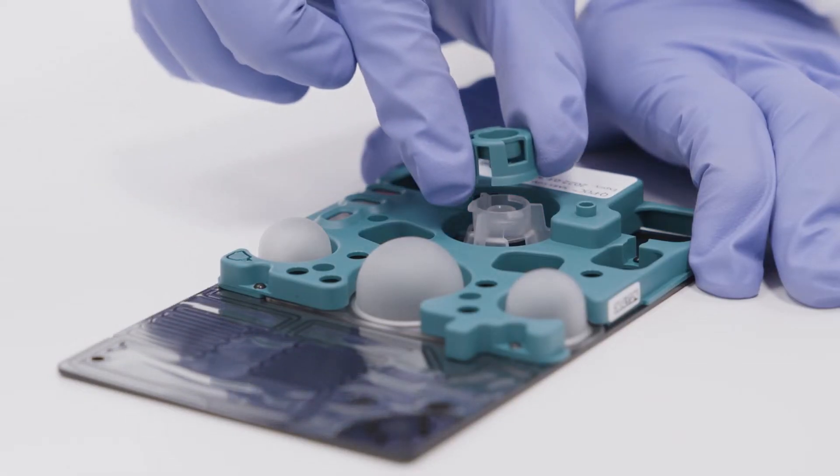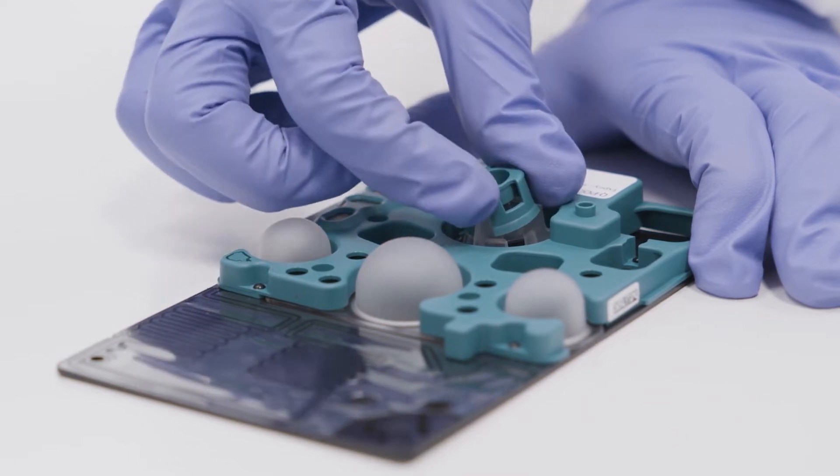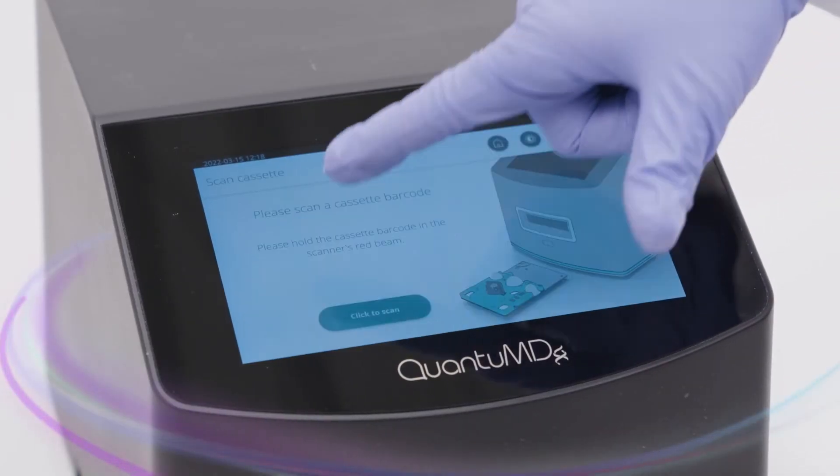Seal the sample inlet port with the cassette cap. And now you can start running a test.